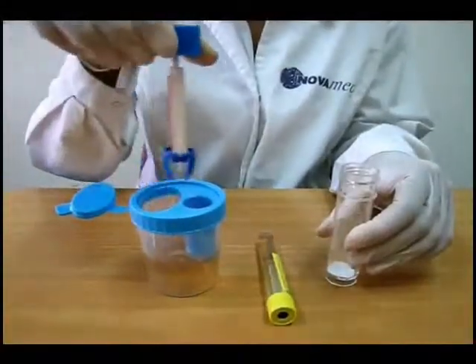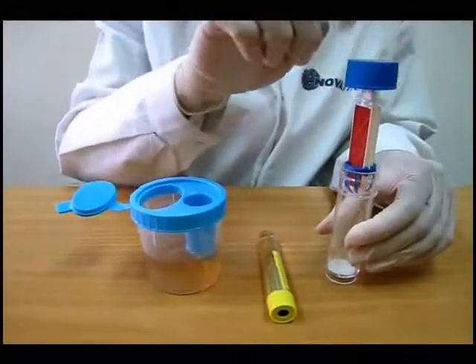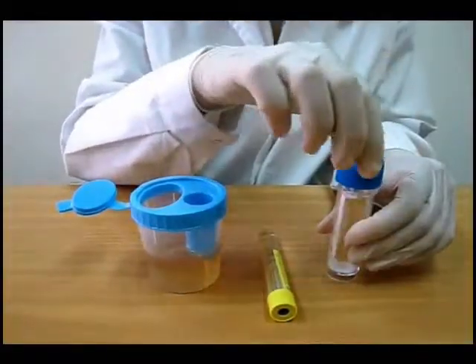Tap the cap with a firm, vertical and continuous motion and screw the cap. At the end of procedure the prongs remain on the top of the tube.